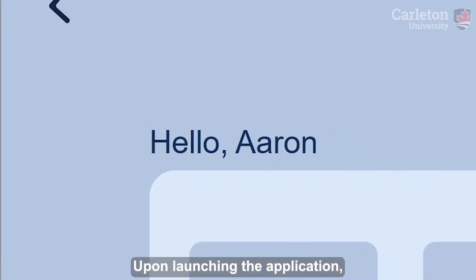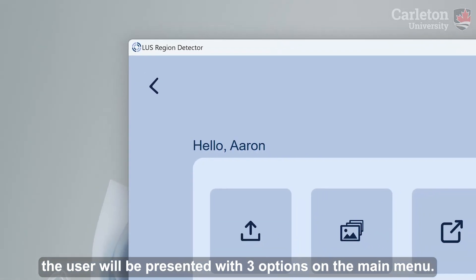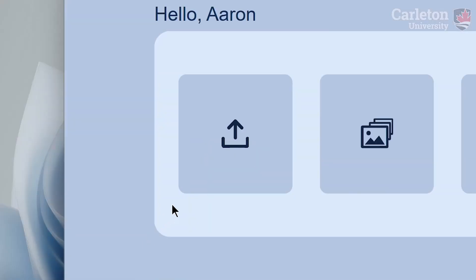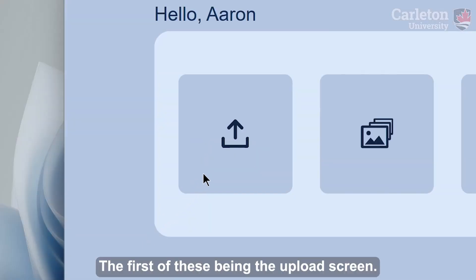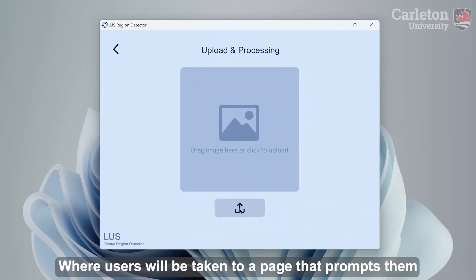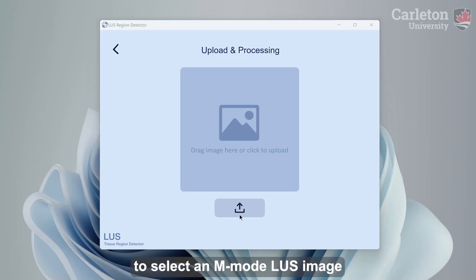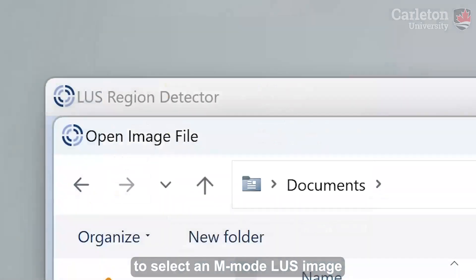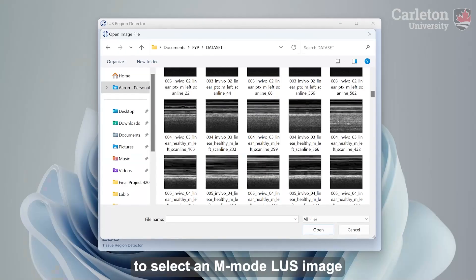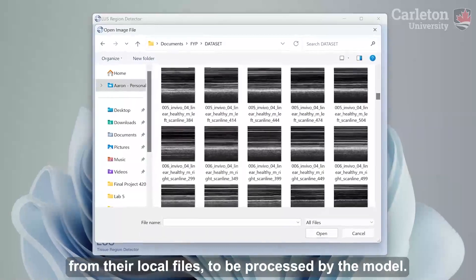Upon launching the application, the user will be presented with three options on the main menu. The first of these being the upload screen, where users will be taken to a page that prompts them to select an M-mode lung ultrasound image from their local files to be processed by the model.